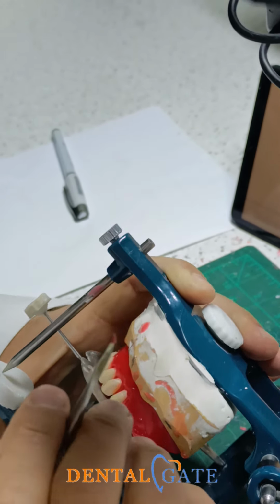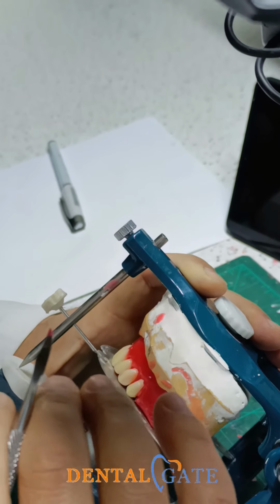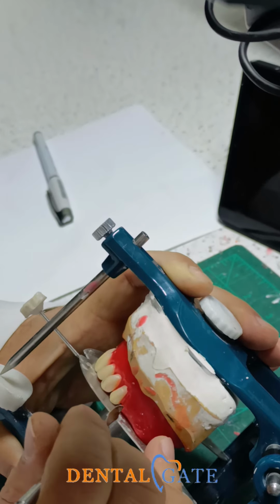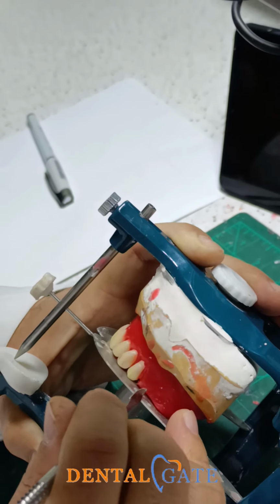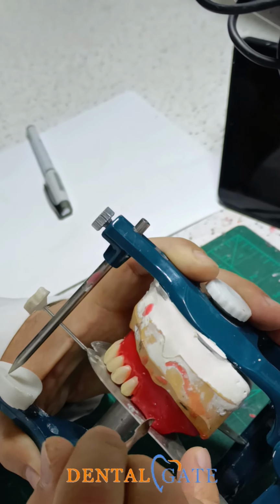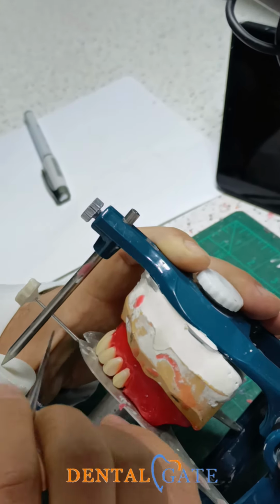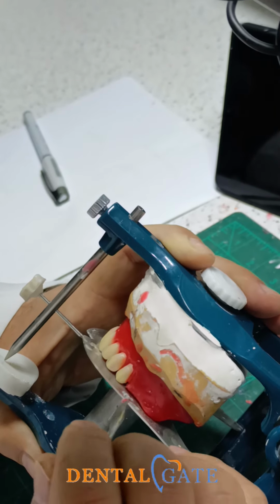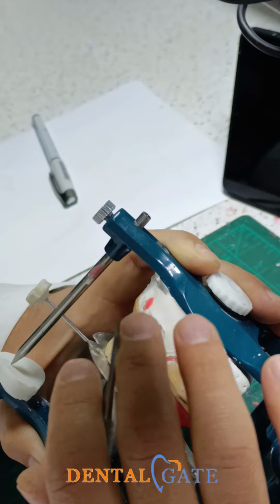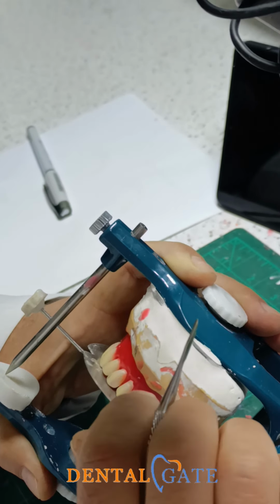Okay? And my objective now is to preserve the occlusal plan. Because this premolar will make an impact on the other one. The other one will make an impact on the molar. So until we reach the 7, my objective now within the occlusal table is to put the teeth within the occlusal plan. There is no one plan for all teeth. This unfortunately does not exist here because we have human beings. Okay?